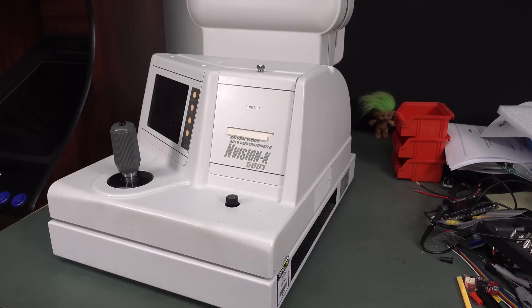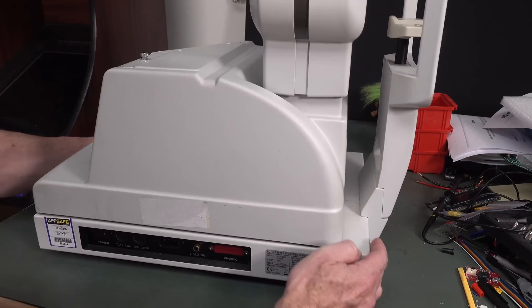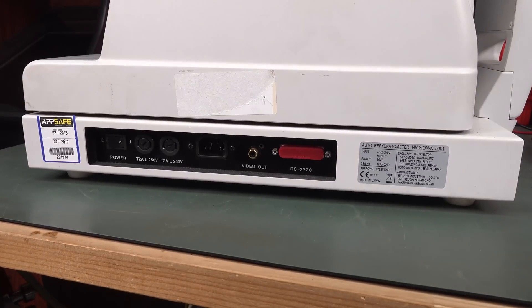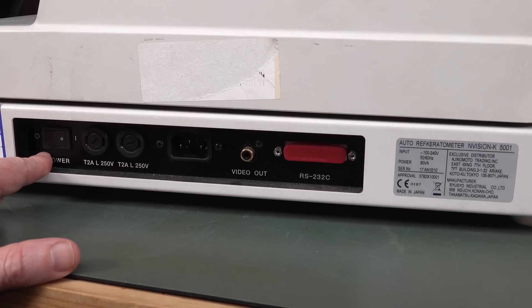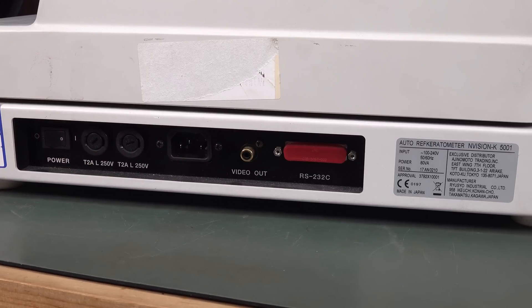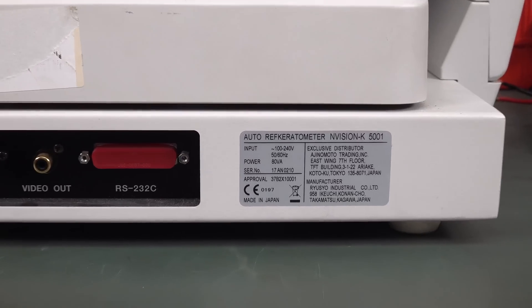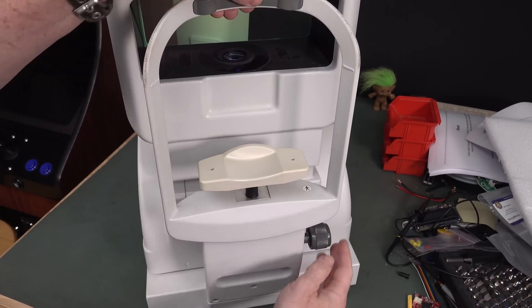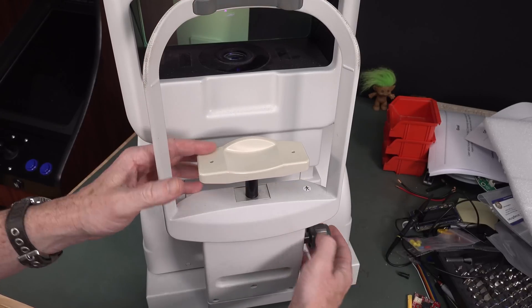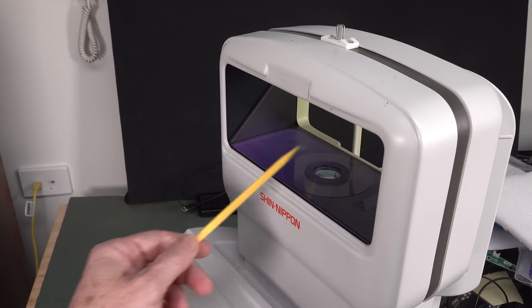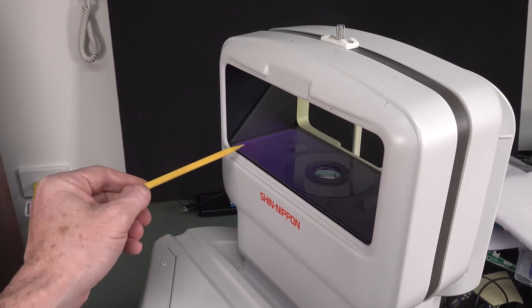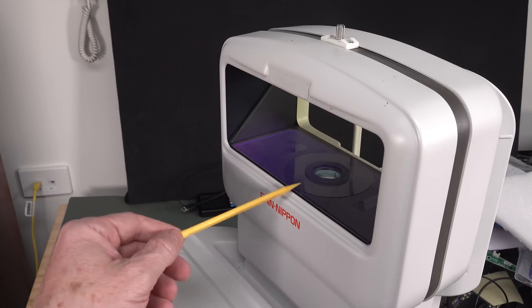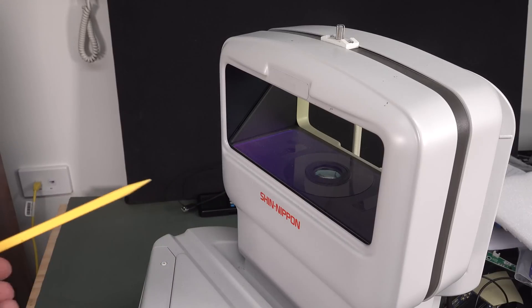All right, let's have a look at this bad boy. It's so big. My lens just doesn't do it any justice. So that's pretty darn heavy, too. The only interface on it is down here. We've got a mains, we've got a video, a composite video. I might be able to get greater resolution than what we get on that piddly little 320x240 screen or whatever it is. Power. Some fuses. And an RS-232 with still the original protective cover. And, of course, all the best stuff's made in Japan.